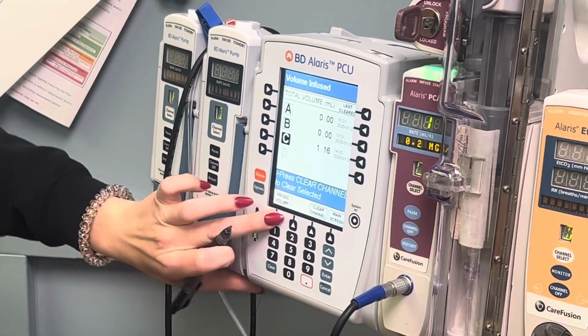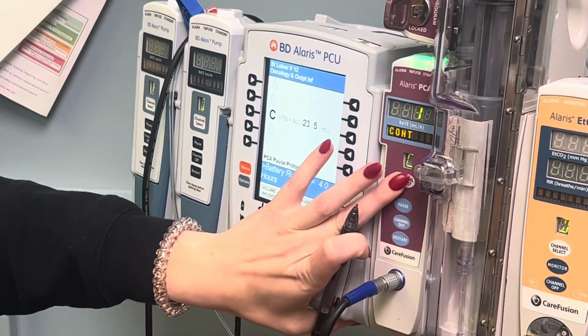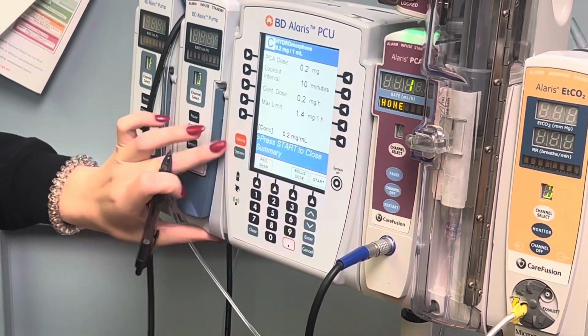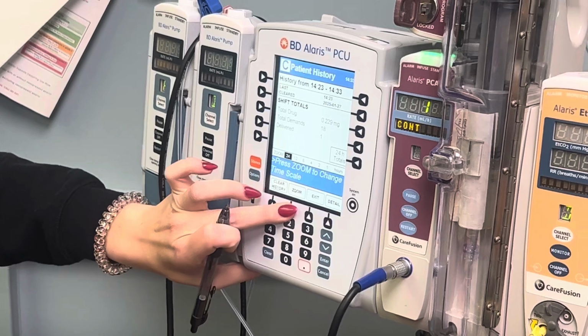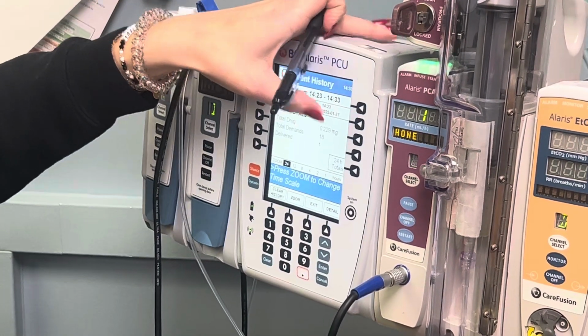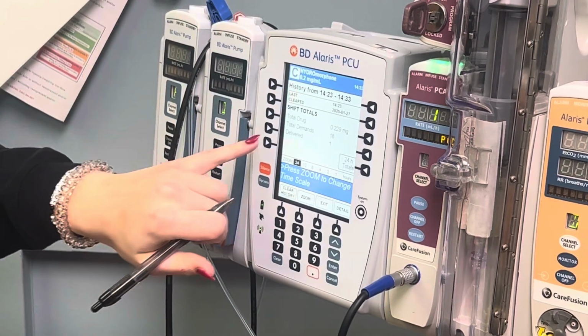You're going to clear that channel, and then you want to go find out the actual history of the PCA. So you hit channel select, options, patient history, and go ahead and zoom out all the way 24 hours, and you'll see the total drug.